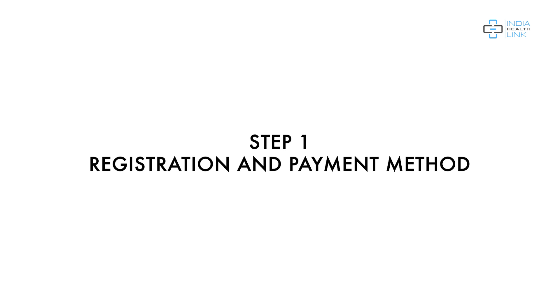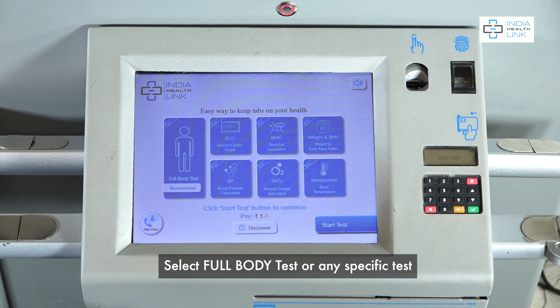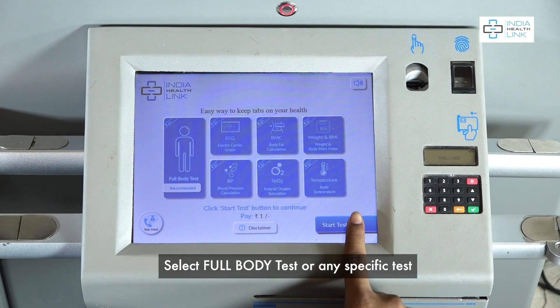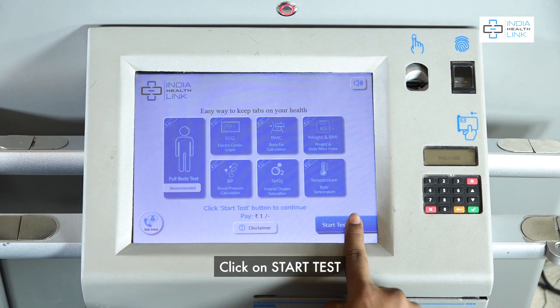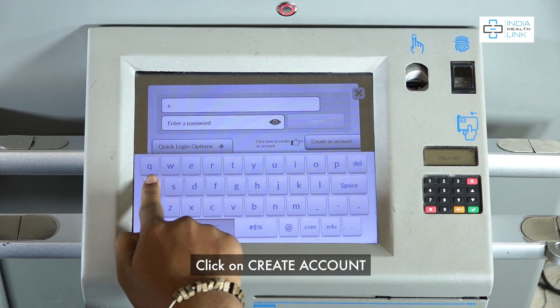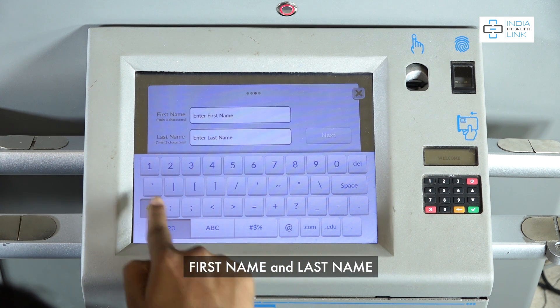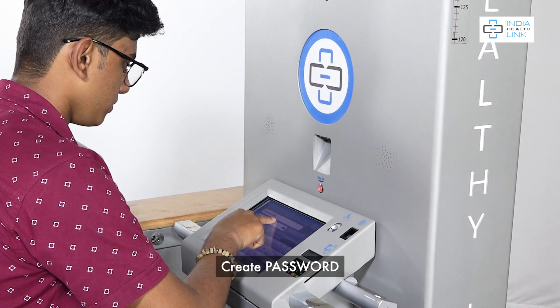Step 1: Registration and Payment Method. Select Full Body Test or any specific test. Click on Start Test. Click on Create Account and enter your Mobile Number.